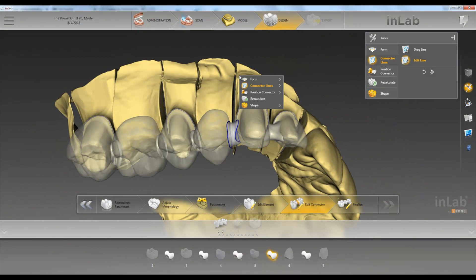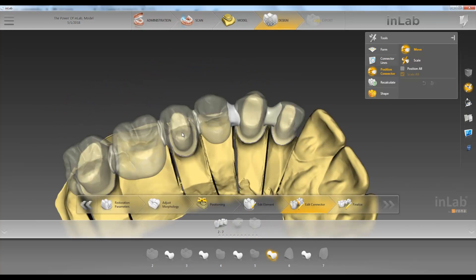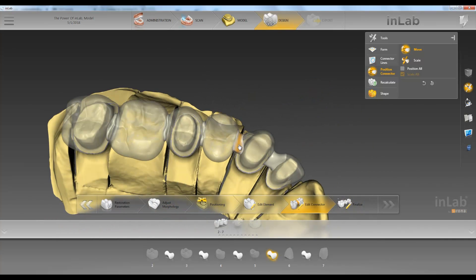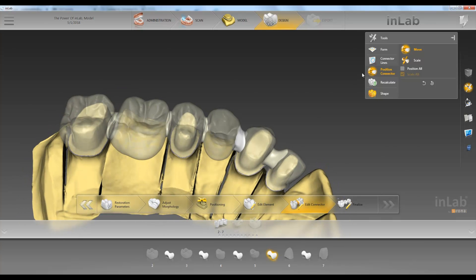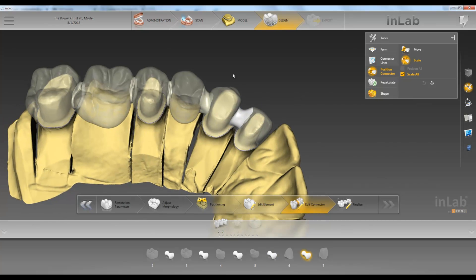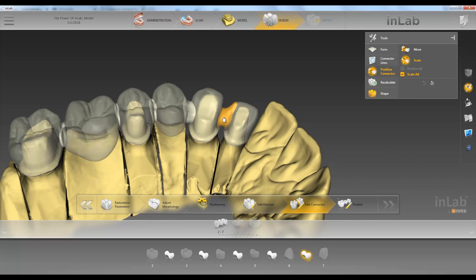Next tool we have is our position connector. Under that we have position and scale. First we'll go over position — so let's say we want to move this connector up or down, or buccal or lingual. Then we have scale: if this connector is a little too small and we want to scale it up, all we have to do is left click on the connector and move your mouse up or down to make it bigger or smaller.